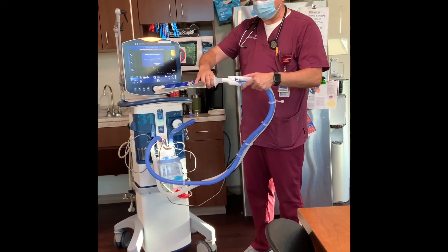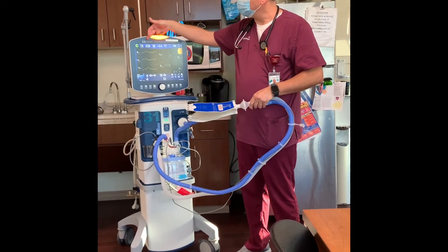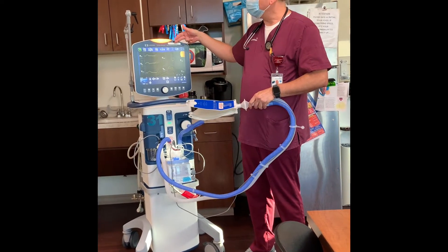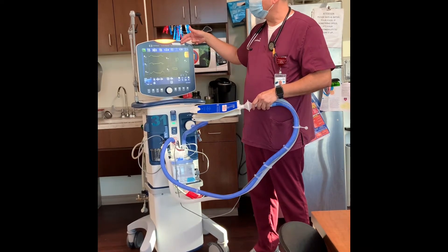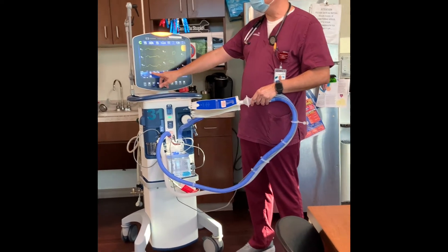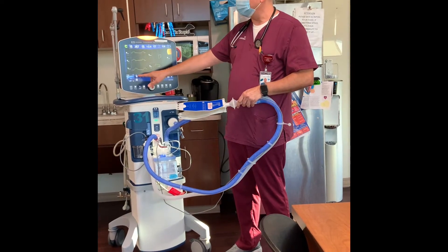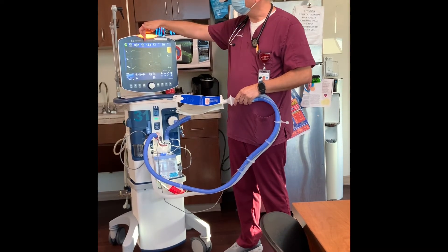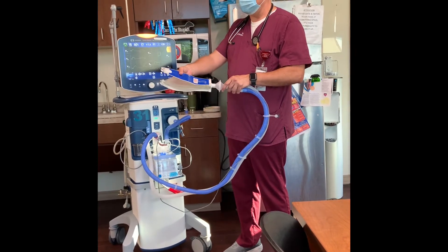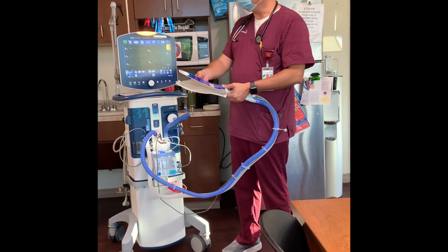I'm going to activate the test lung here and it'll start ventilating. Up here you'll see these numbers — this is what the patient parameters actually are. A couple things to point out on the patient parameter screen: first is the breaths per minute. The set rate is 16, but if the patient is breathing spontaneously above the ventilator, that number will change, and that's a good number to track and pass on in report.